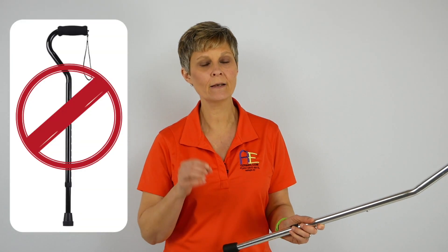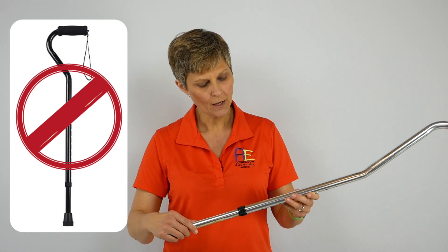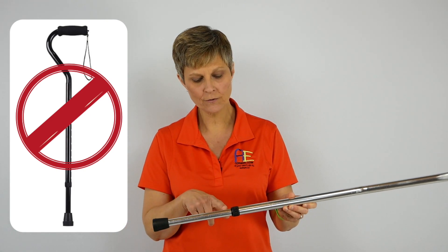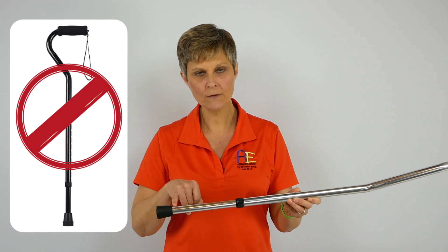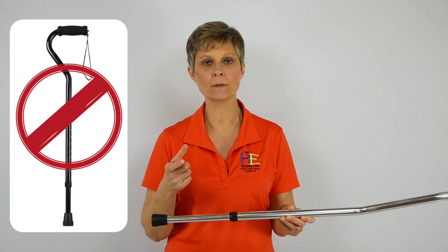The other question I had right off the bat was will this work with a cane? The answer is no — it's not advertised to work with a cane. The end of cane tips vary in all types of sizes, but this common type of cane right here, the tubing at the end is again going to be too small to work with that crutch tip included in the box.